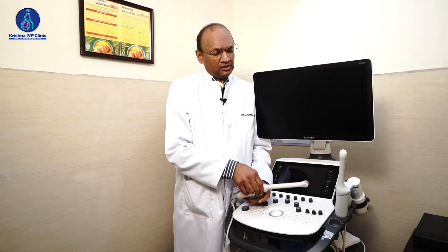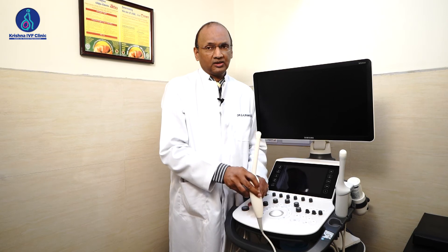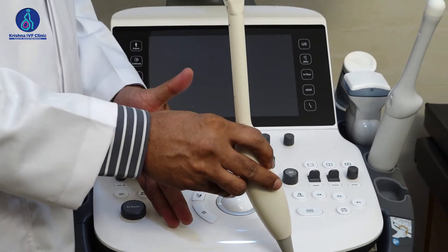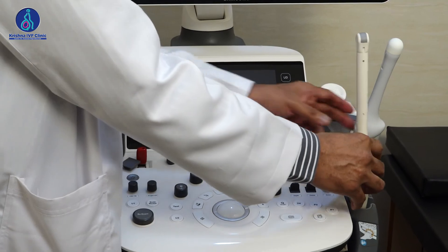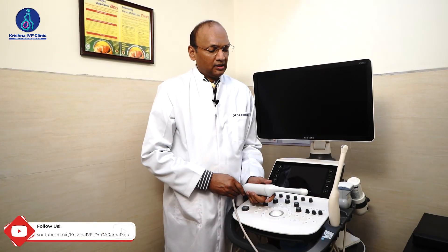This is basically a two-dimensional probe and has all the functions of a two-dimensional probe. But a three-dimensional probe is the best-in-class technology, giving multi-dimensional imaging — both 2D and 3D — along with the ability to do offline editing.